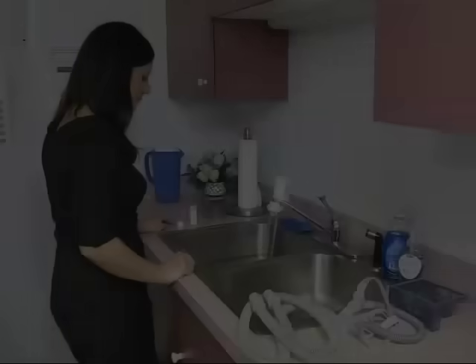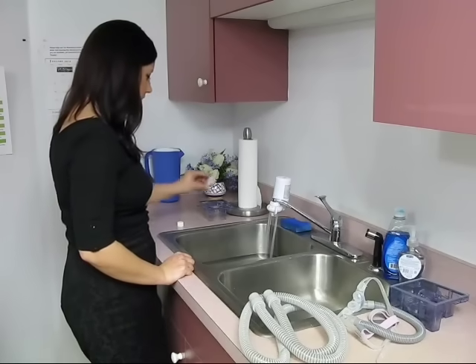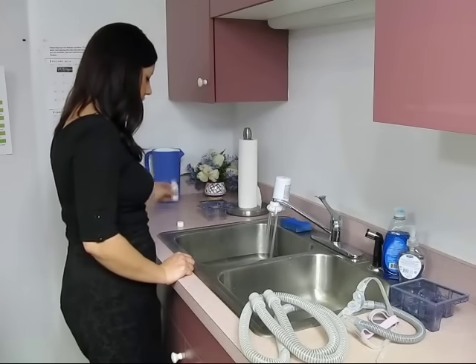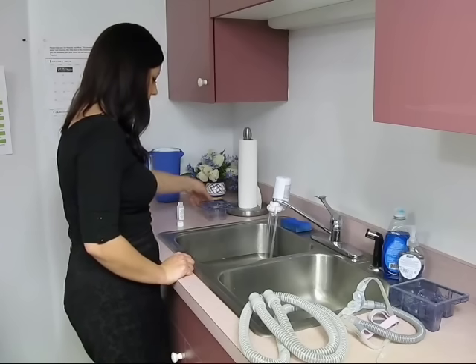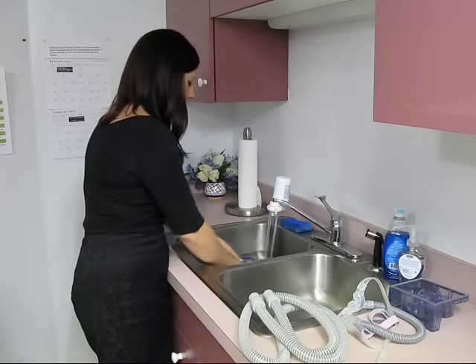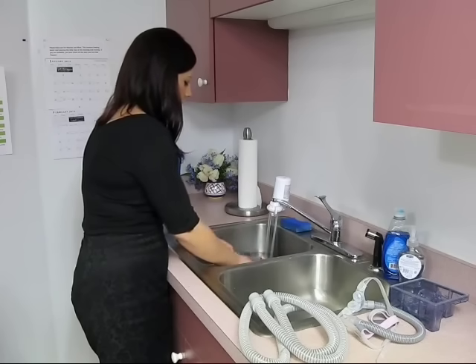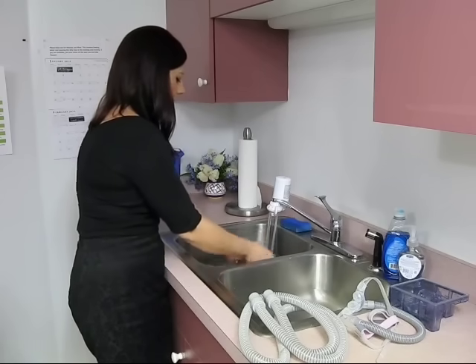Use the pre-wash like you would ordinary dish soap. Add about one quarter of the supplied pre-wash to a gallon of water. Wash your mask, hose, and humidifier reservoir and rinse thoroughly with water. Besides doing this before using your SoClean for the first time, you can use the pre-wash whenever you hand wash your equipment or when you introduce new equipment into your rotation.